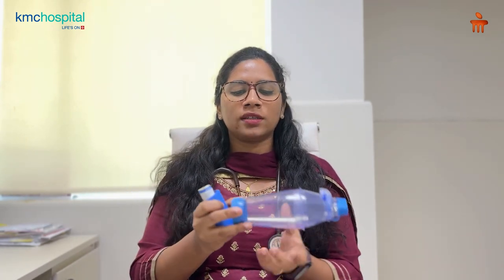10 steps to take an inhaler. This is the inhaler — always use it with a spacer. The first step is to shake the inhaler thoroughly. After that, open the cap and place it into the spacer.